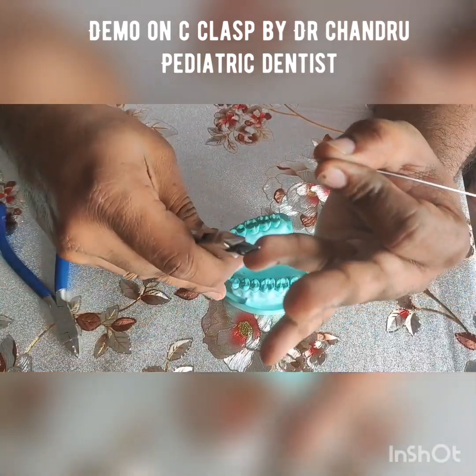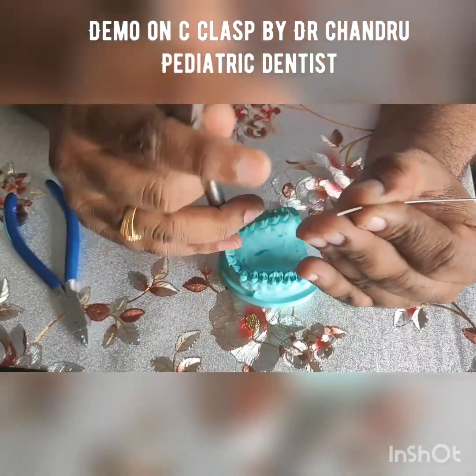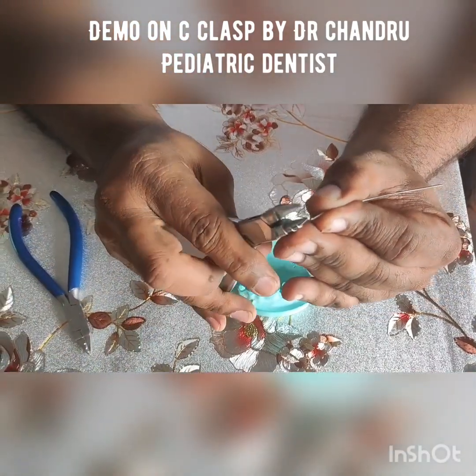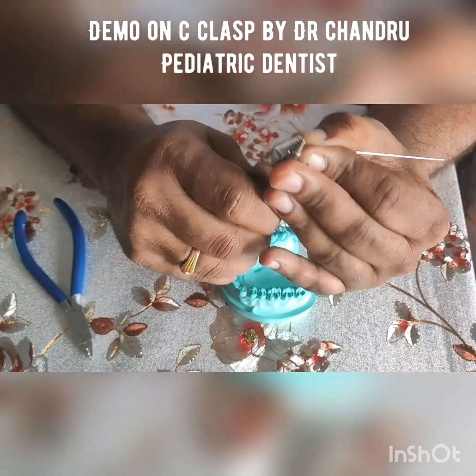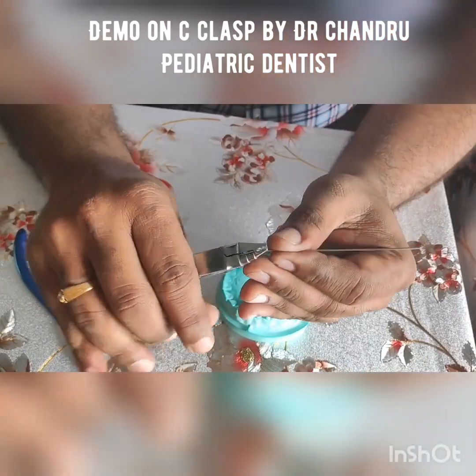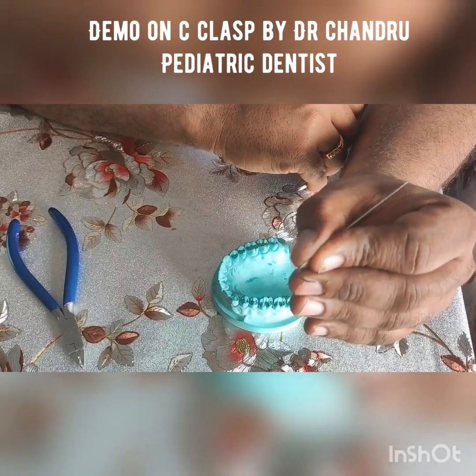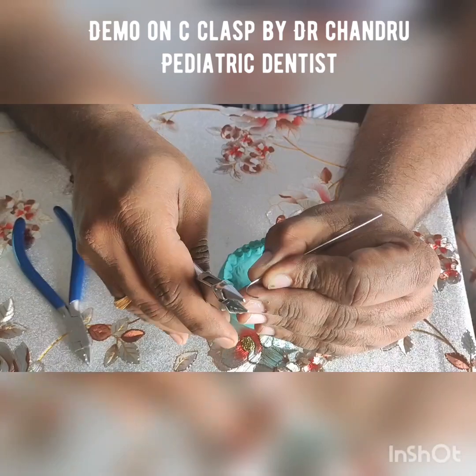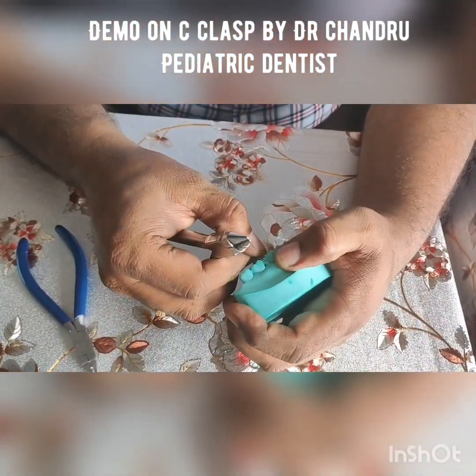Utilizing the curved end of your universal plier with the support of your index finger as well as your thumb, hold the wire in such a way that the curved end of your plier is placed and moved in a forward direction until a C-shape design has been achieved.